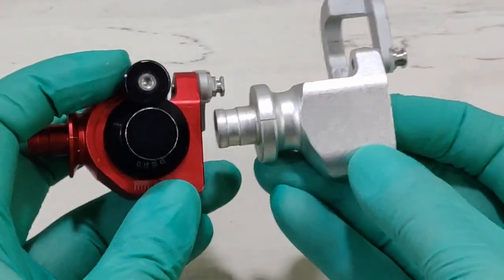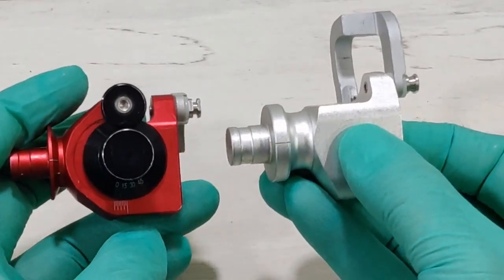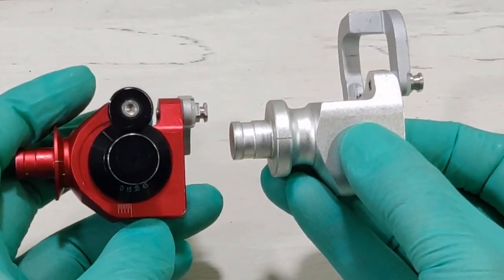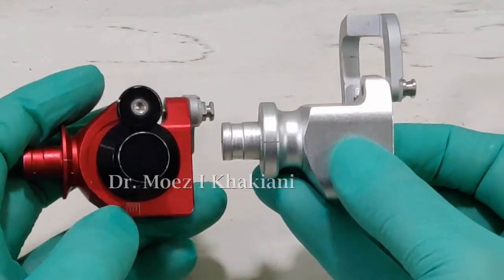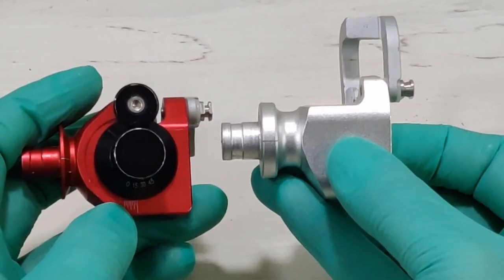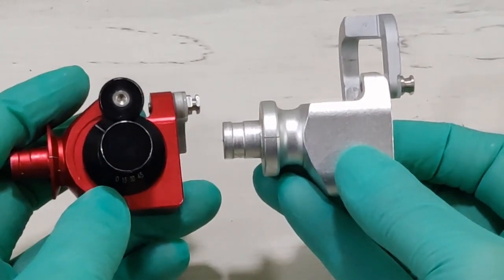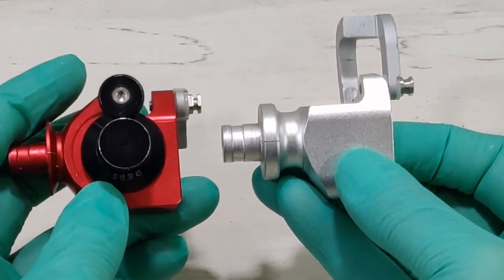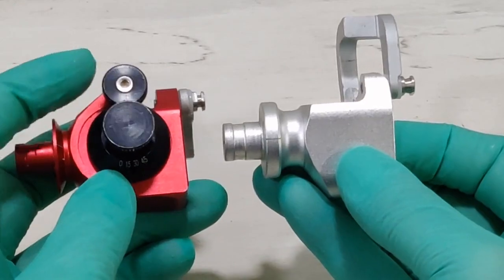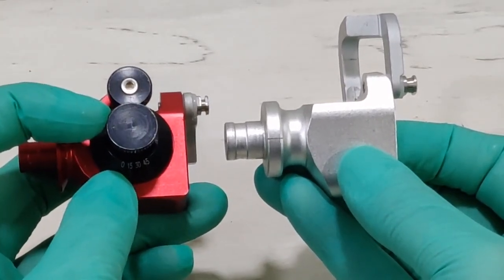In my opinion, a simpler version of the articulator, which is the CSA 400, works just fine for me. Why? Because I don't ever want to change the immediate side shift. I want to keep it at 0. Added, the L value, if kept at 15 for all my cases, does not affect occlusion at all, which means I don't have to buy a complicated articulator like the one in my left hand.